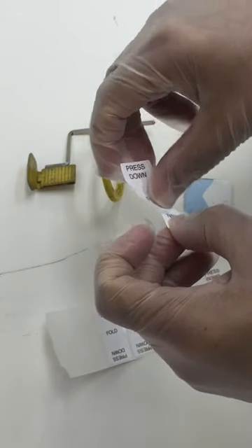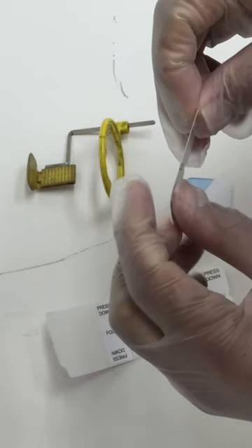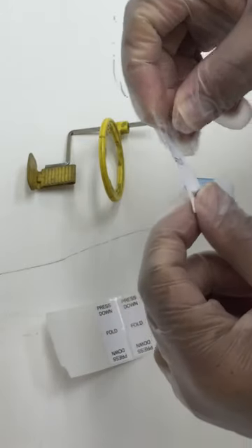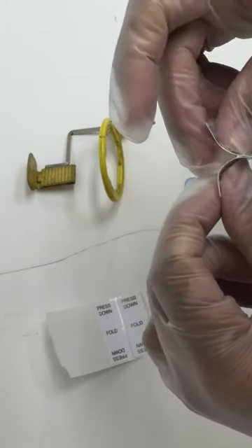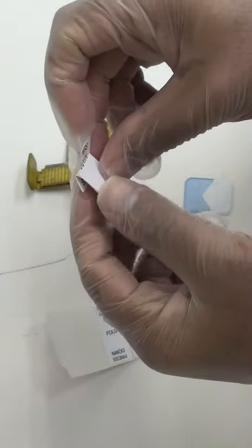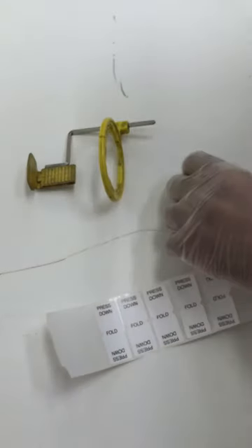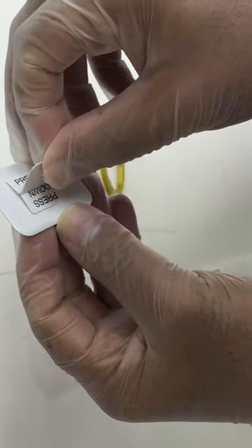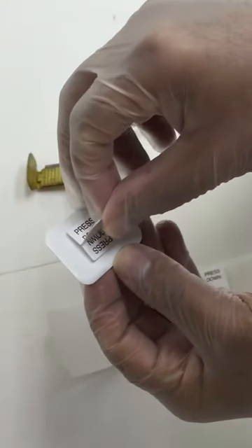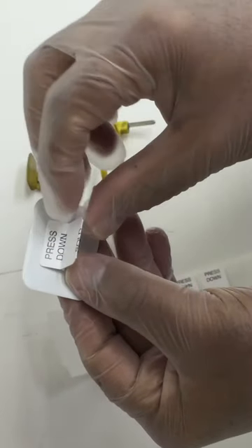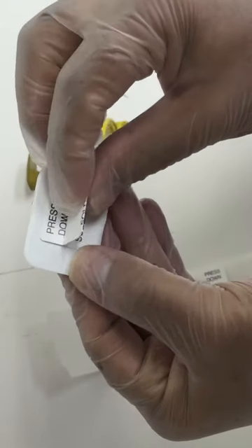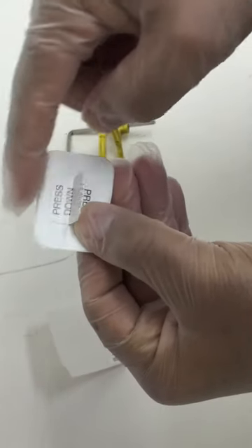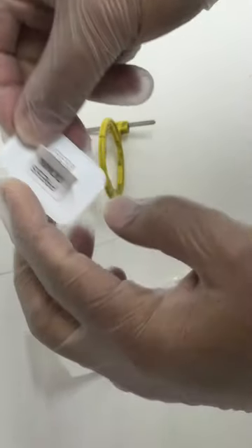The red one is not available in Westmead venue. Just put the adhesive tab folded and place it directly in the center of the film. Make sure that the borders are parallel to the x-ray film borders.